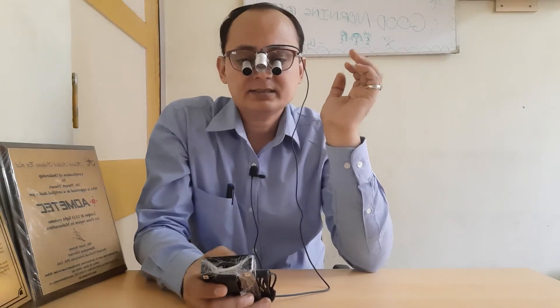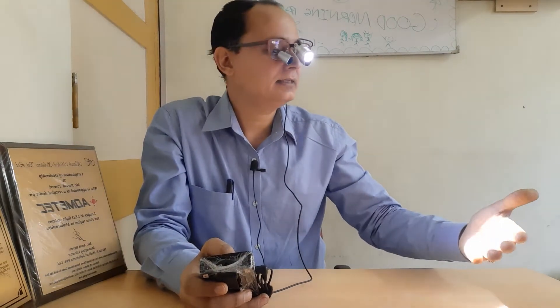It is a reasonably powerful light — it has a 60,000 lux output. If I switch it on you can see that it focuses like this. It also has illumination control with 15 steps. I can set it to the lightest intensity and then go on increasing the intensity all the way to the highest. This is the maximum intensity.